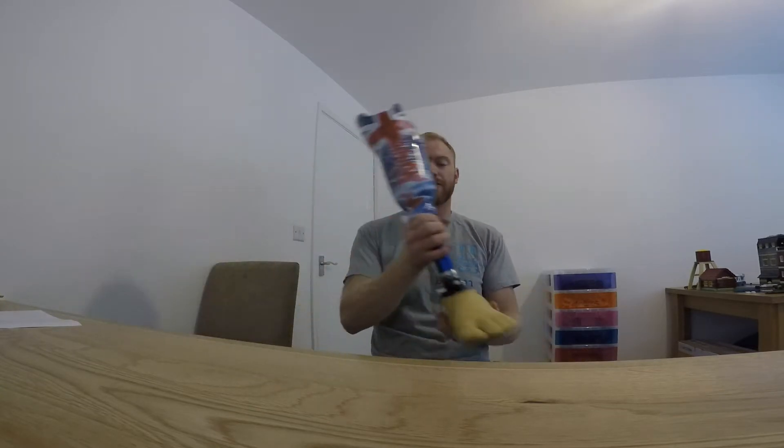The reason that I want to wear it - if I was to walk along the beach, sometimes I wear a flip-flop on my foot and then I don't wear anything on the other side. Even just that half a centimetre or a centimetre of foam on your flip-flop, it'll slightly put me off balance, it'll slightly throw my hips out and it'll be painful.